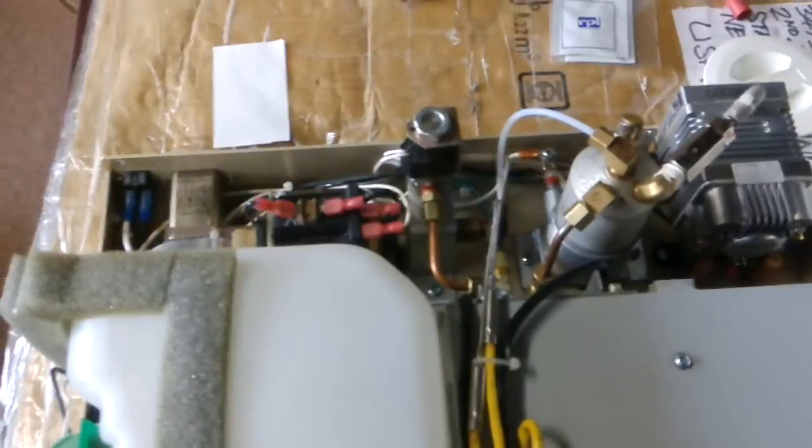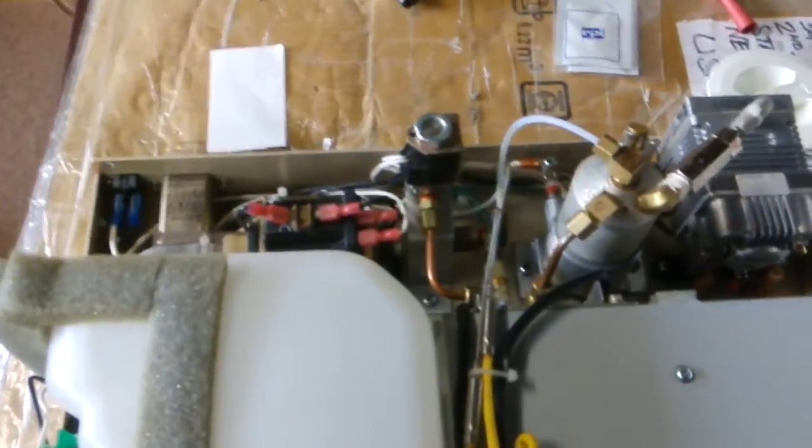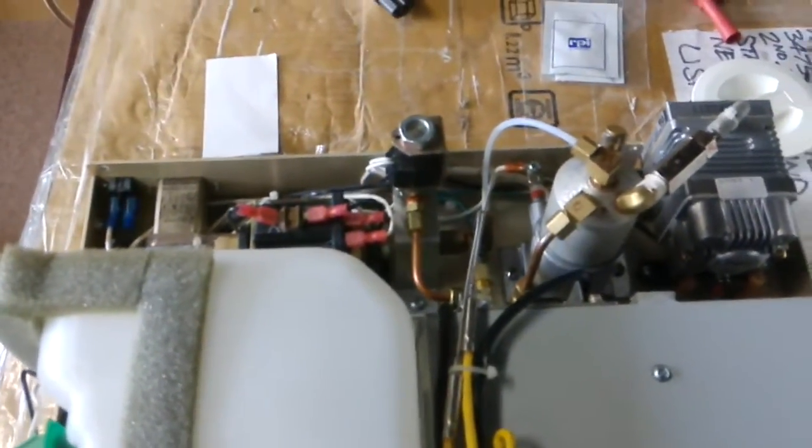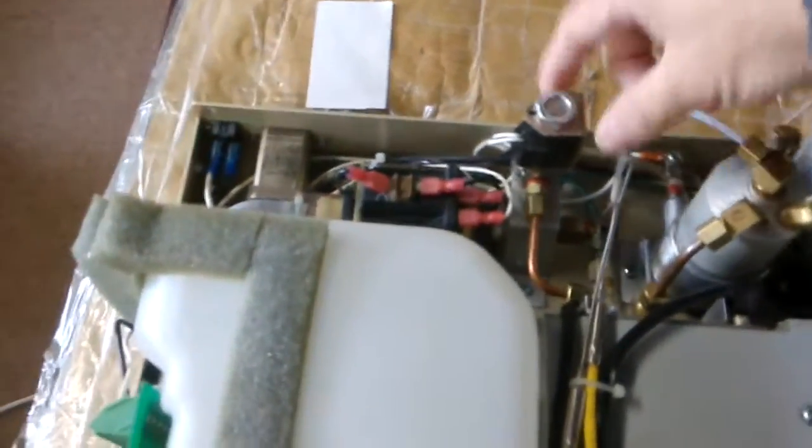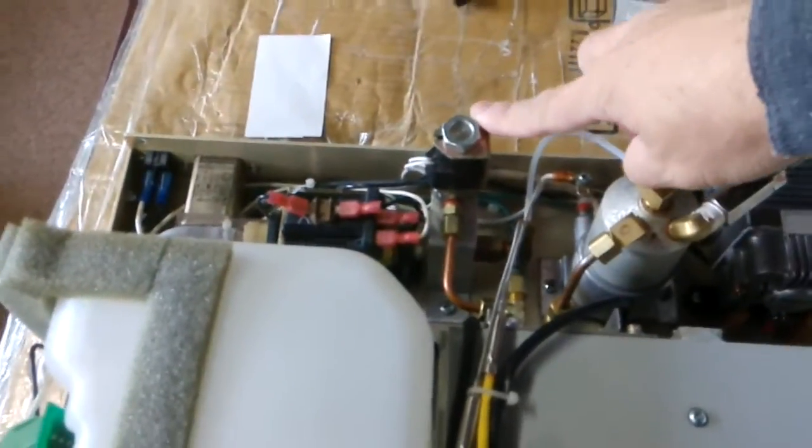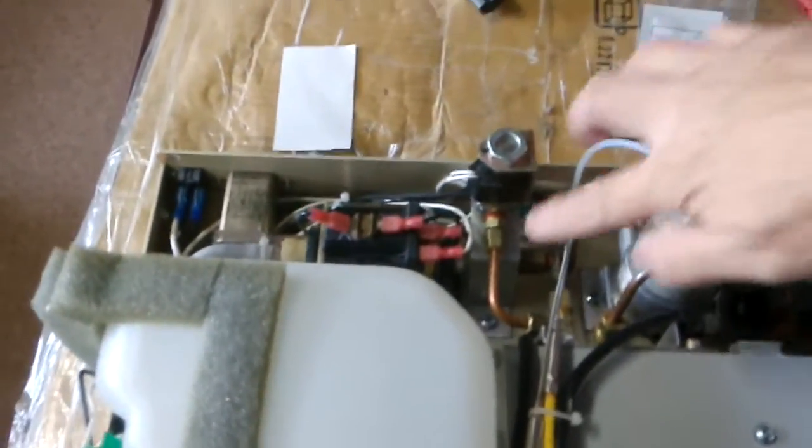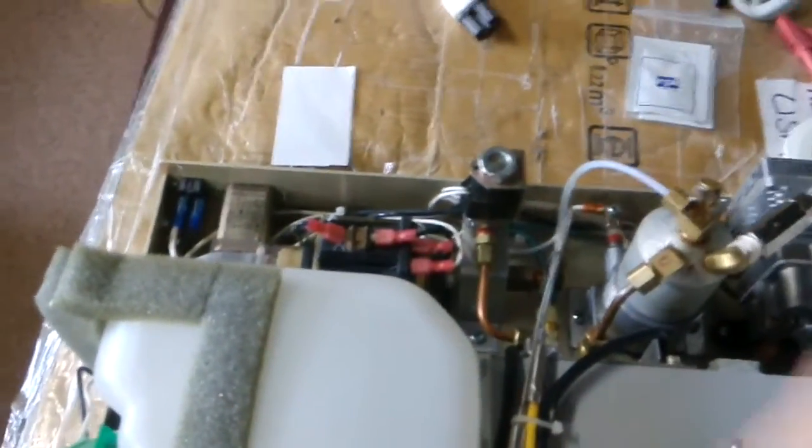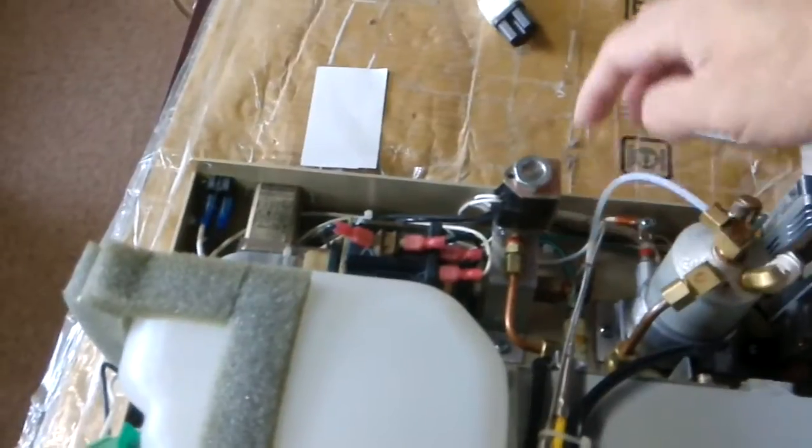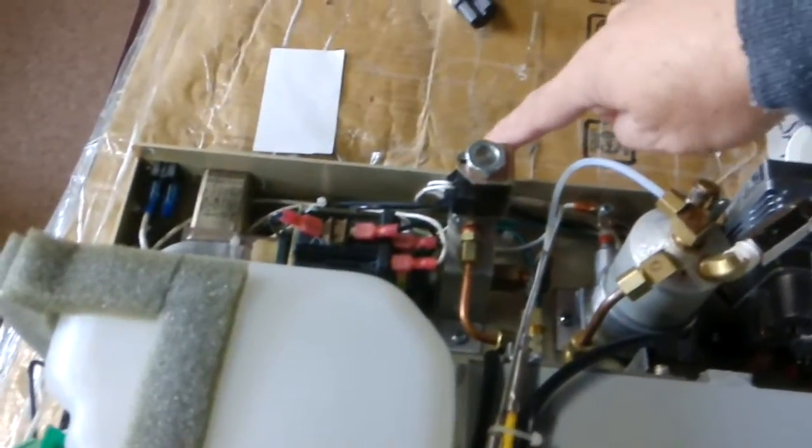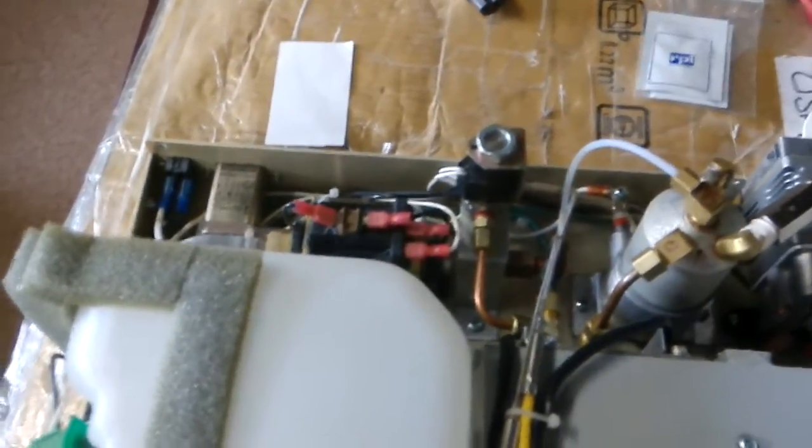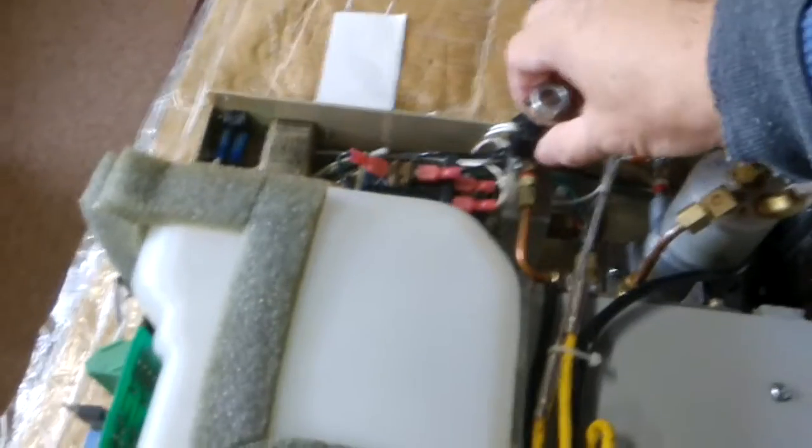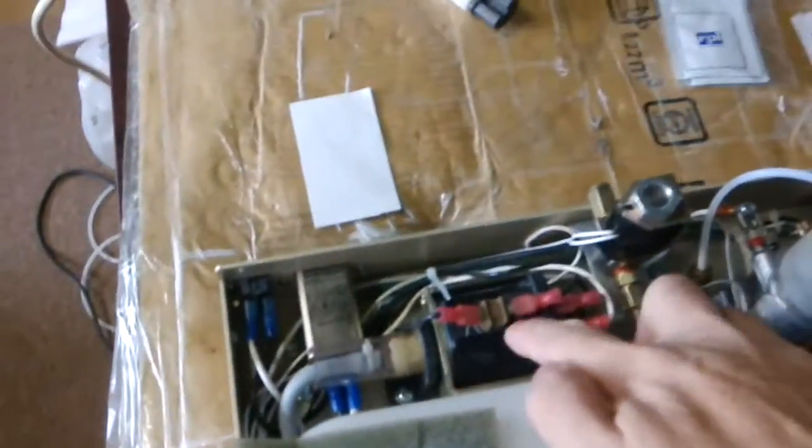This one is a solenoid for exhaust. When they purge the air out from the cassette and when the cycle finishes, all the hot steam will come out from here, controlled by this solenoid.